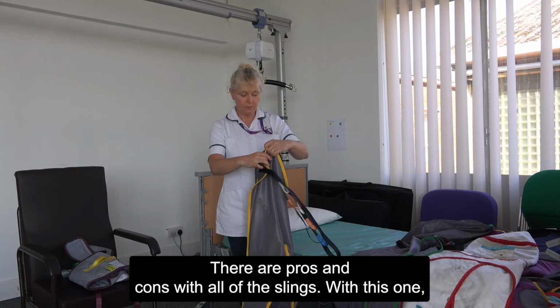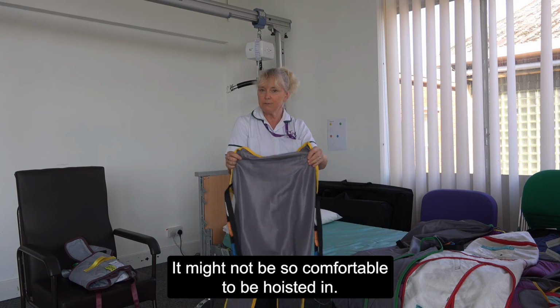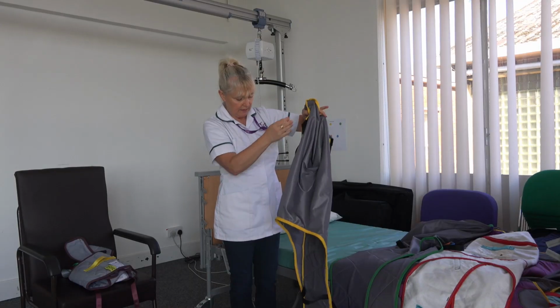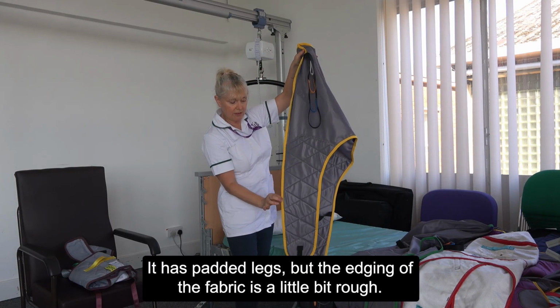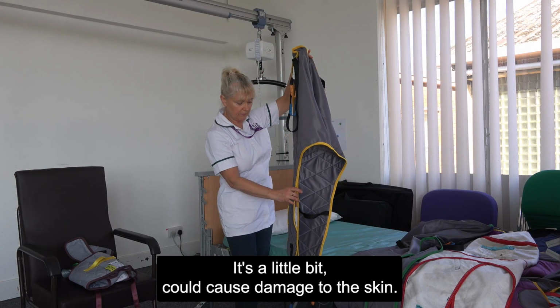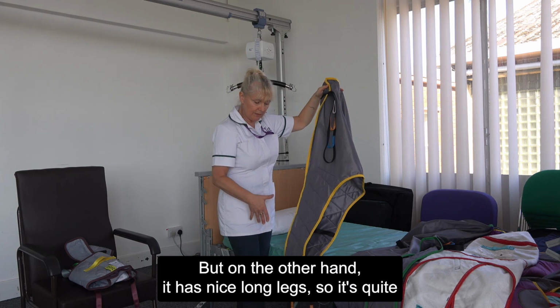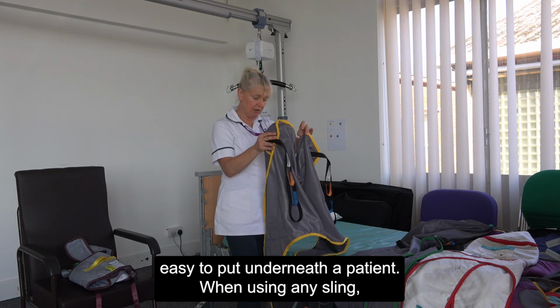There are pros and cons with all of the slings. With this one, it's very thin material, so it might not be so comfortable to be hoisted in. It has padded legs, but the edging of the fabric is a little bit rough, and could cause damage to the skin. But on the other hand, it has nice long legs, so it's quite easy to put underneath a patient.